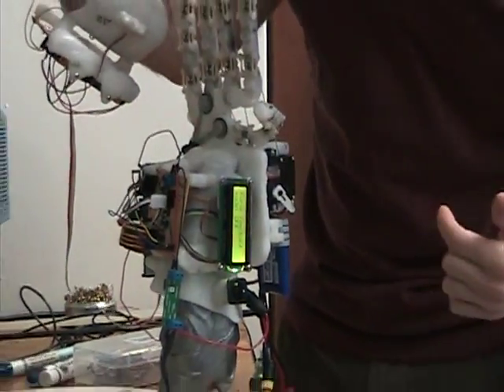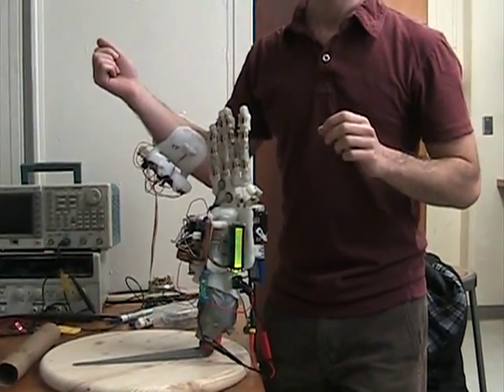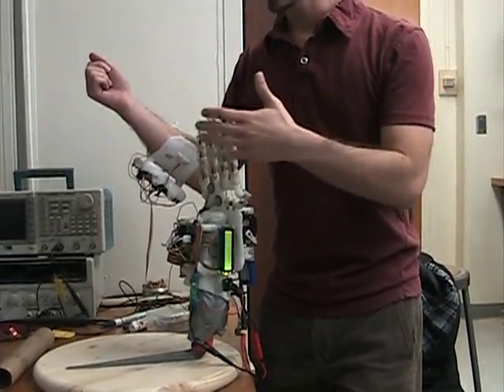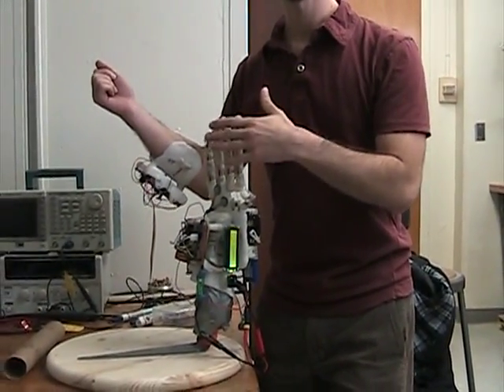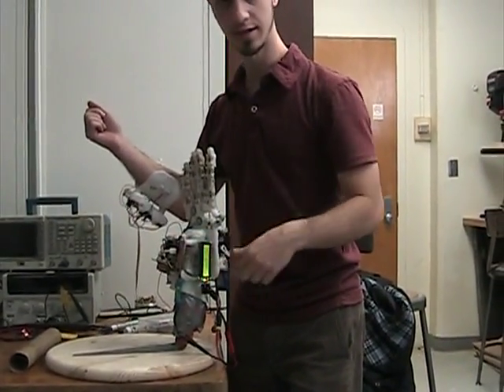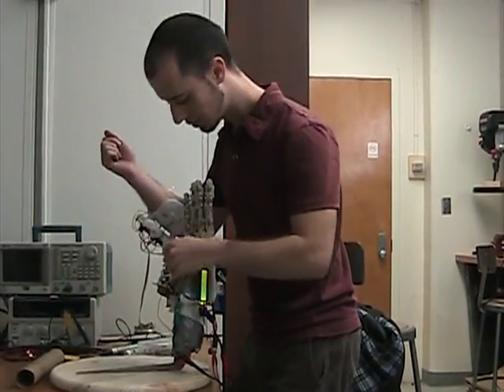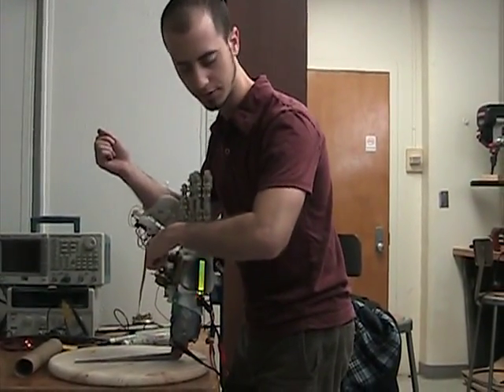Another screen will activate or deactivate the force feedback mode. It will detect when the force sensors exceed a certain threshold of force, and in that case it will stop the hand and just the servos will hold.